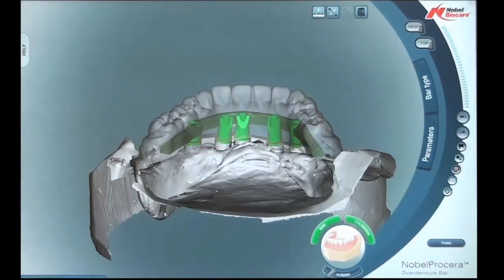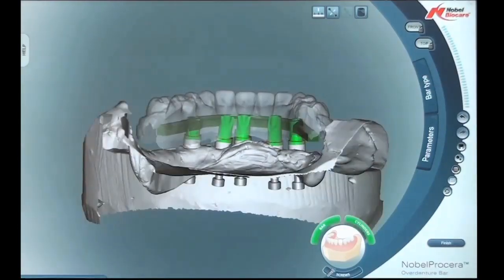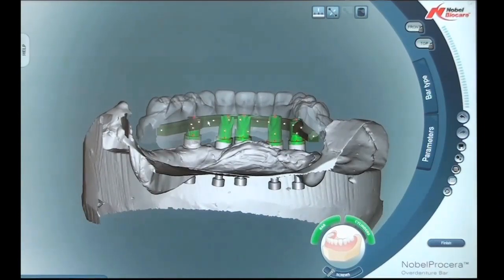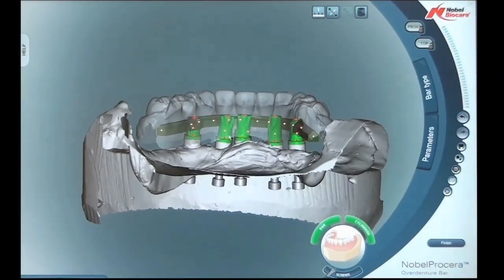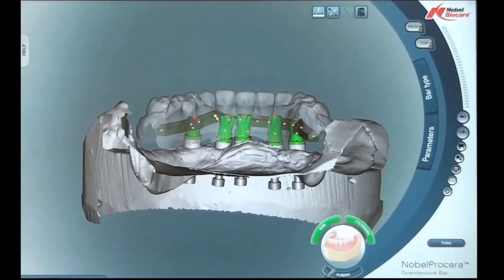This way we're able to look at all our aspects: interclusal space, bar height, cylinder height, and the space underneath the bar relative to the model or the soft tissue. By clicking on the bar we're then able to manipulate the bar itself. By clicking on a white dot, we're able to actually move the bar in different segments up and down to get to the correct position that we need to achieve.